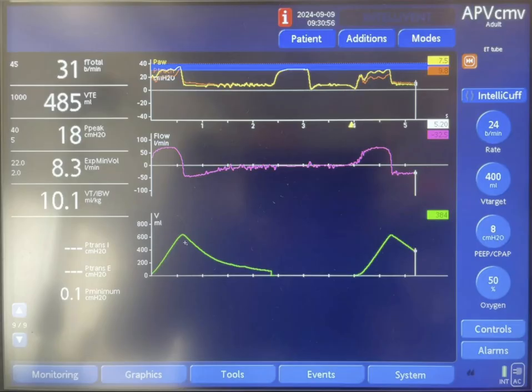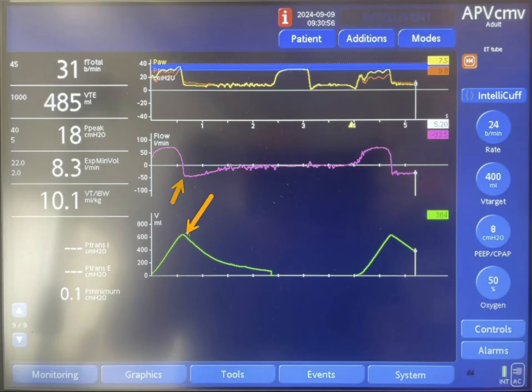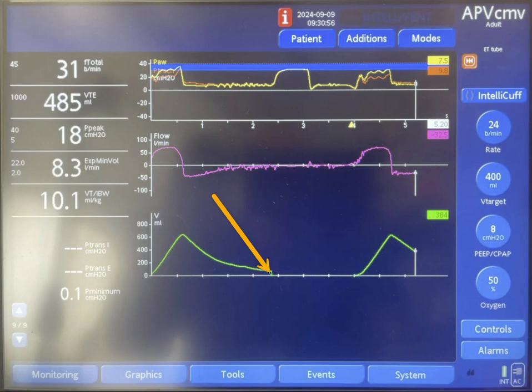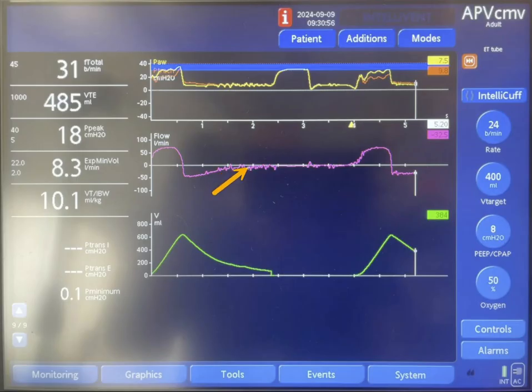The larger tidal volume is caused by the patient's effort. The volume then goes down and continues to go down throughout expiration. At this point it looks like the volume is cut off and recalibrates. Notice that the flow goes down gradually to zero, and then at this point the flow stops completely.